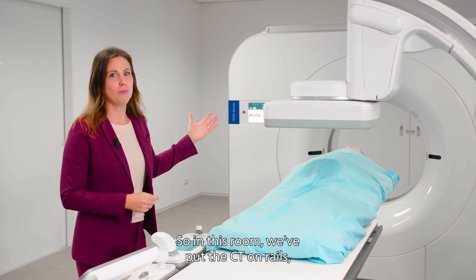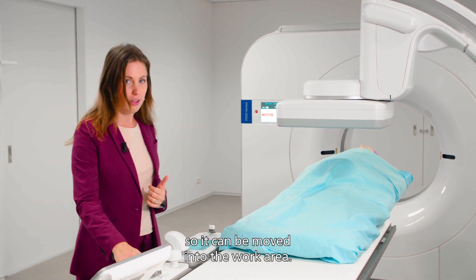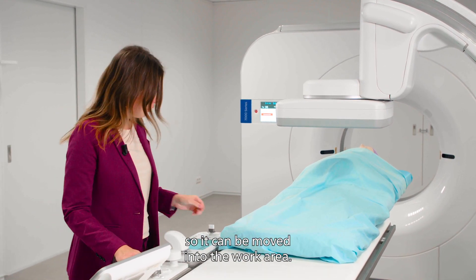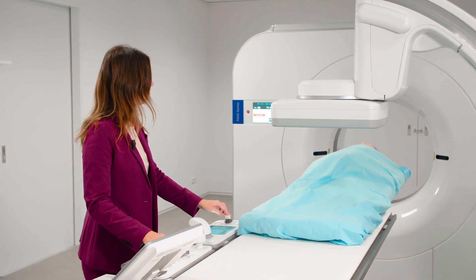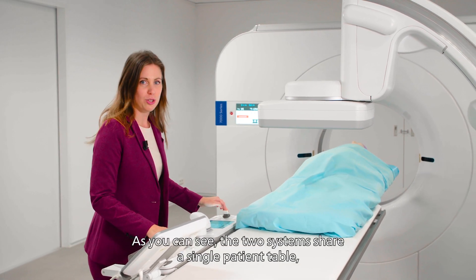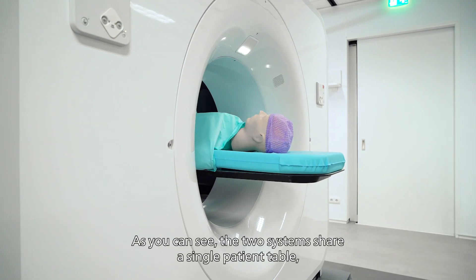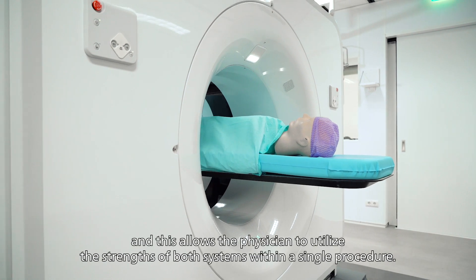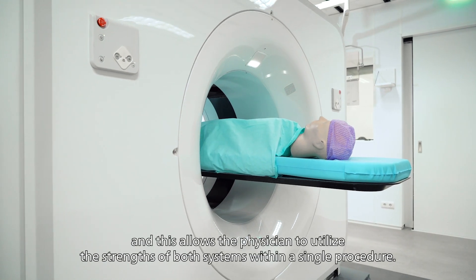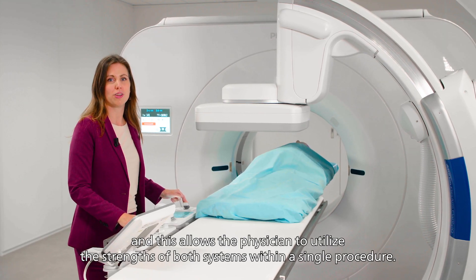So in this room we've put the CT on rails so it can be moved into the work area. As you can see, the two systems share a single patient table, and this allows the physician to utilize the strength of both systems within a single procedure.